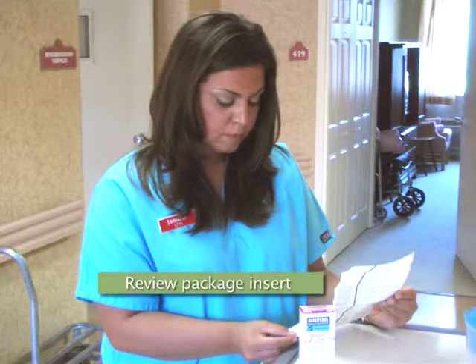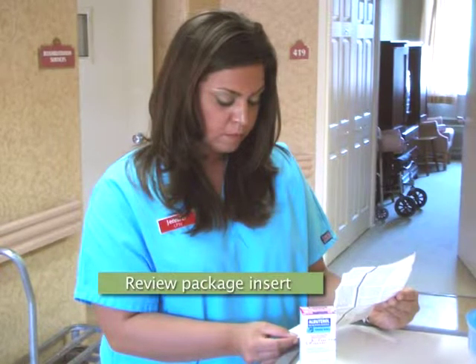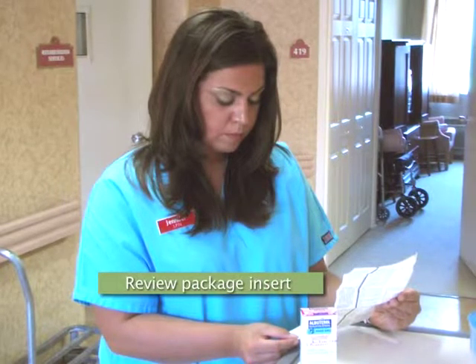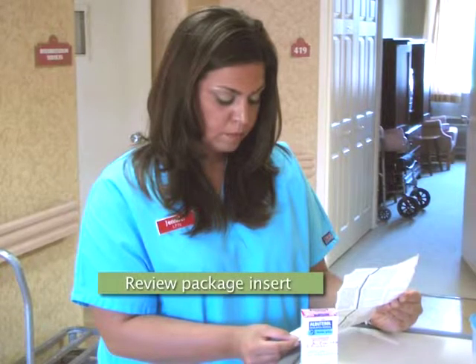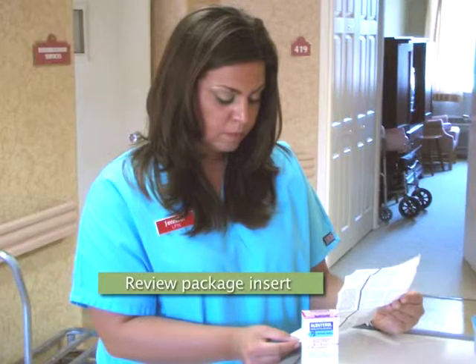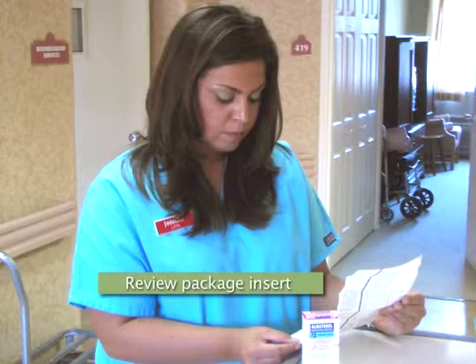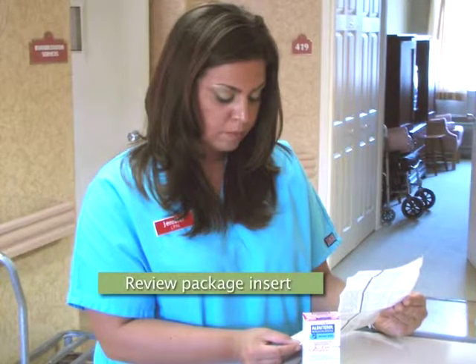Each oral inhalant comes with a package insert that provides the latest product information. Prior to administering any oral inhalant, it is recommended the nurse review the package insert, paying special attention to black box warnings, side effects, interactions, and storage and administration procedures. Contact the physician or pharmacist with any questions or concerns.